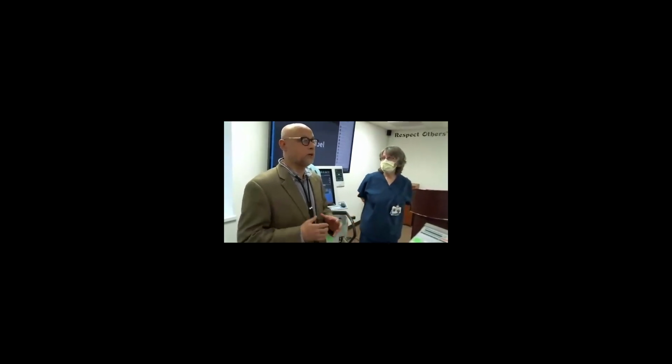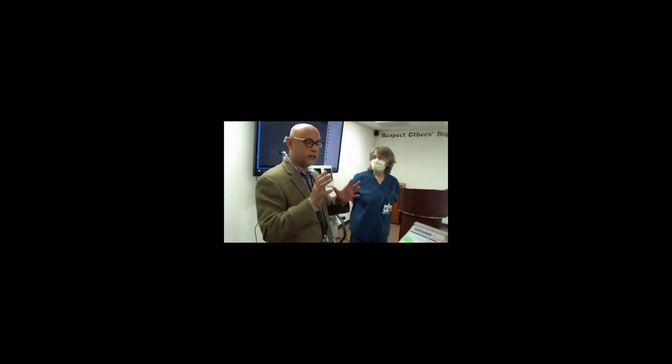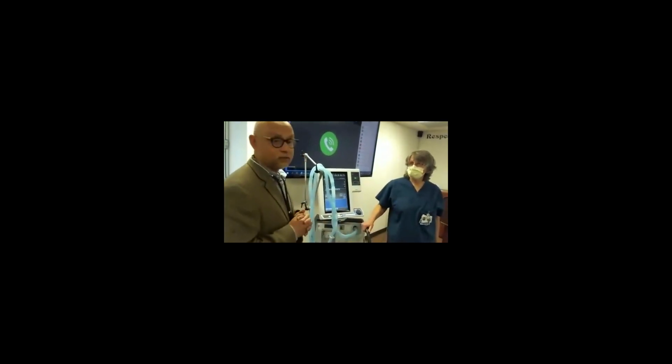Lower volume is good, but not too low. For you, I'm not going to give 300, because with people who get 300, you have to think about the compliance of the tube. That's another issue. So for 1 centimeter of water, the compliance is about 2.6 or 2.3 for this tube. You multiply that by the peak pressure, then you can get the compliance. So you have to add that tidal volume to the patient's tidal volume because you lose tidal volume.